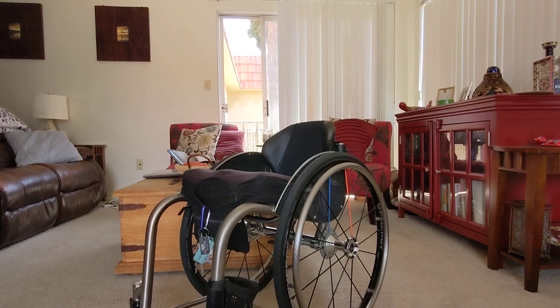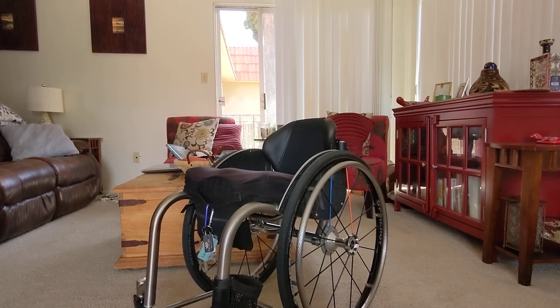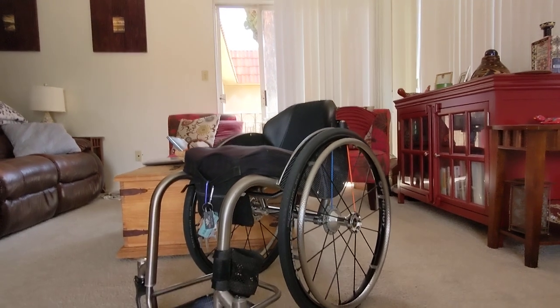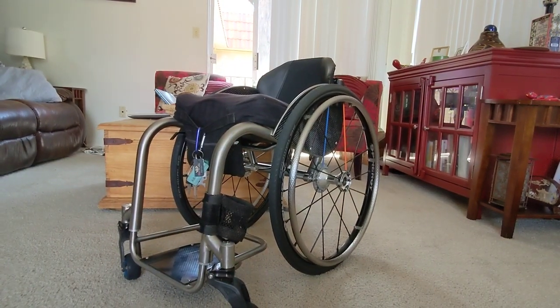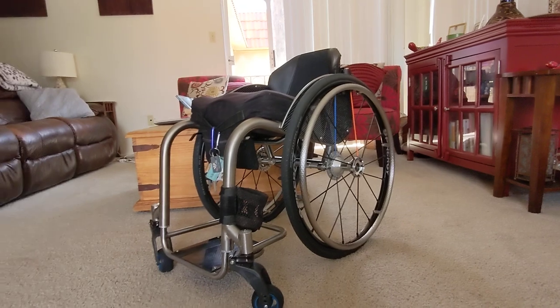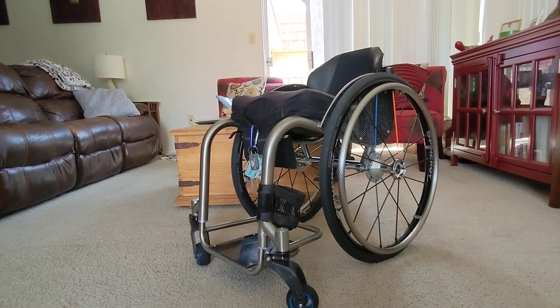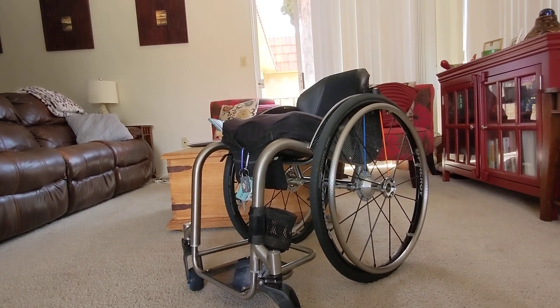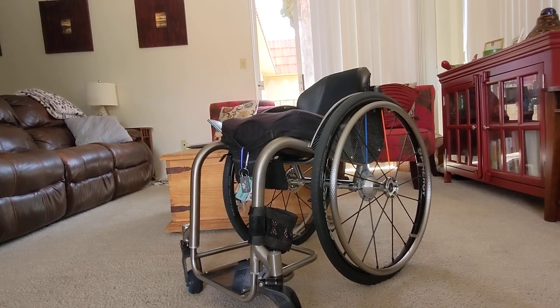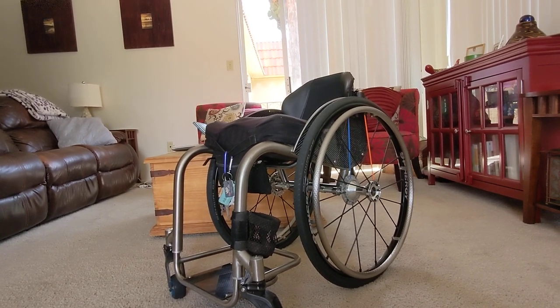They did a leather vinyl along the sides, which is a big wear point for me on previous backrests, and I'm anticipating this holding up a whole lot better — it already has. The center is perforated nylon so you don't sweat as much, which is great living in Phoenix. The Matrix backrest is super rigid; I'm a high-level para at T5-6 complete, so I don't have trunk support. This backrest holds me in so much better, my posture is better, and I don't hear any creaking or flexing when I really throw my weight into it.